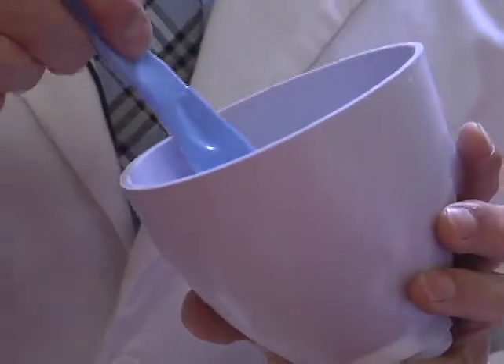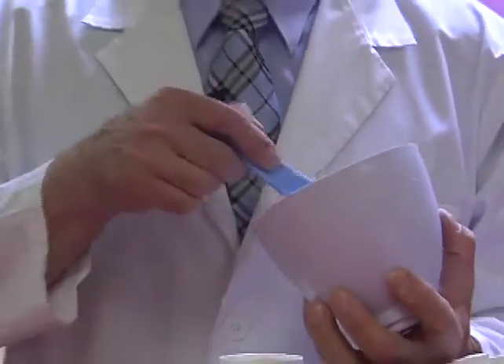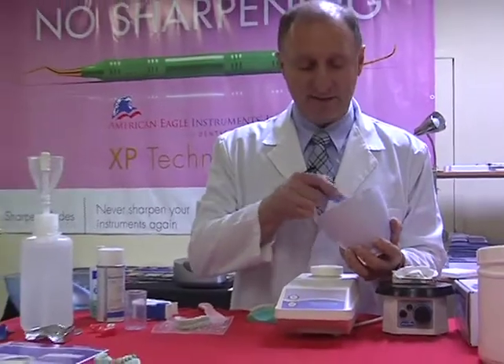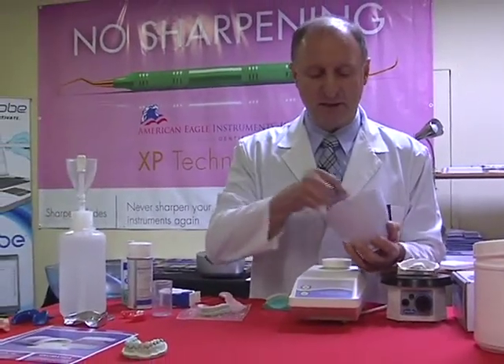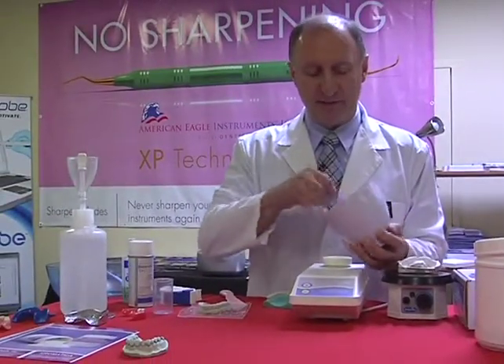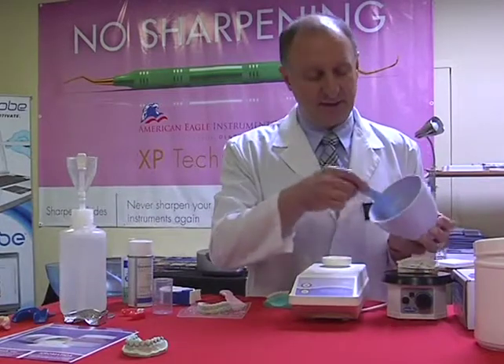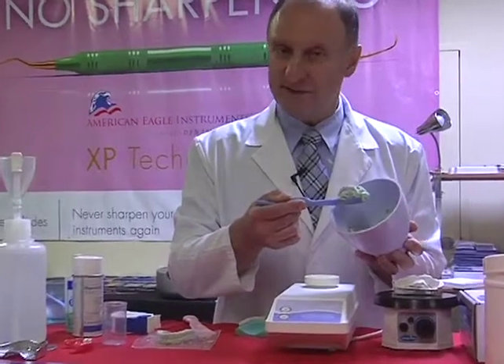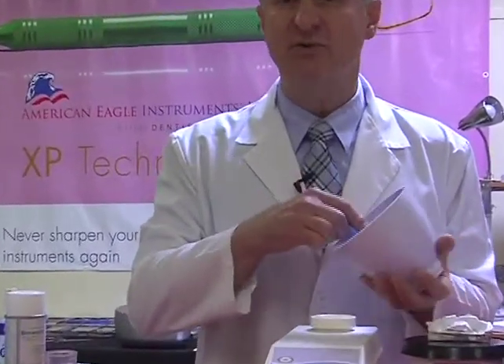Now, when I combine these two together, what we are looking for is the best ultimate mix, as if it was done measured by weight and by volume. So I'm just combining these two together, and this is the type of mix that we should be getting. It looks somewhat dry, but we do want to have a dry mix.